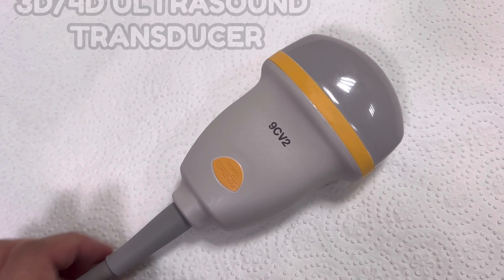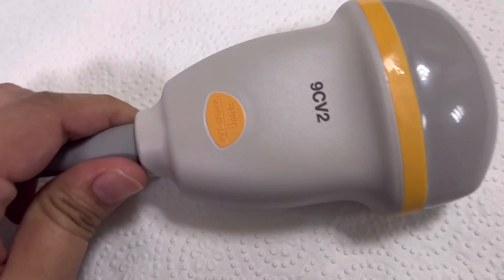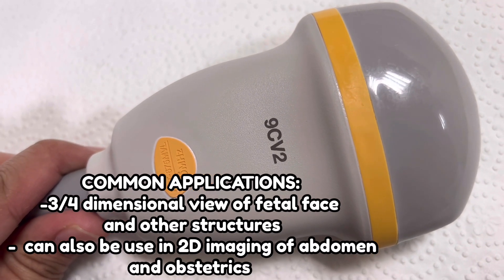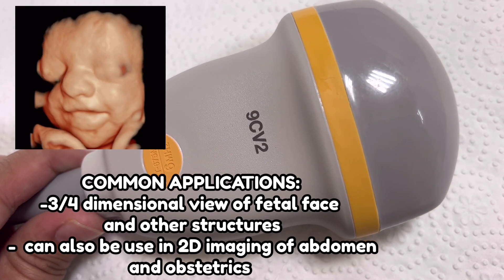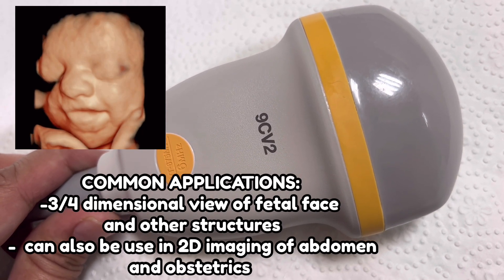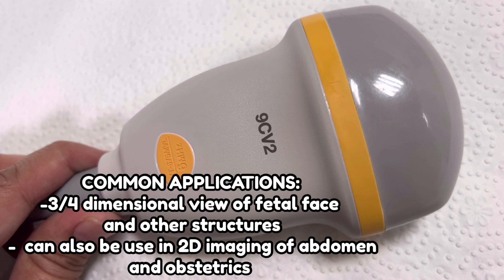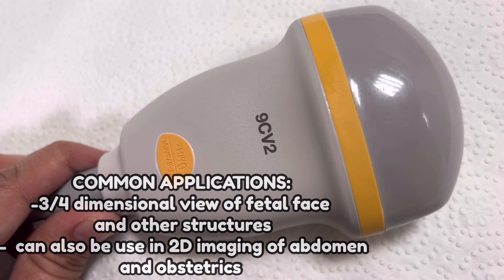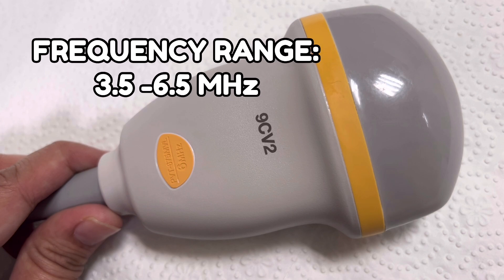Lastly, we have the 3D/4D ultrasound probe. In 4D ultrasound, it is possible to view a live video feed showing movement of the fetal heart wall or valves, as well as blood flow through different veins. It is also a trend to view the fetal face using this probe. Its appearance is somewhat similar to the convex probe, though it is often heavier. It can be used for abdomen or OB/GYN scans, and its frequency ranges from 3.5 to 6.5 megahertz.